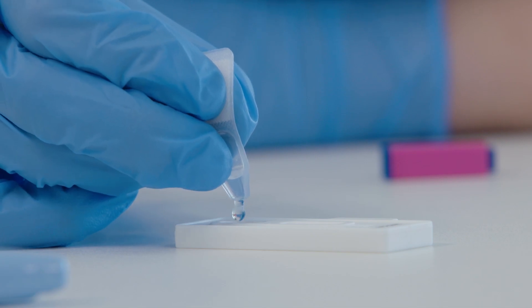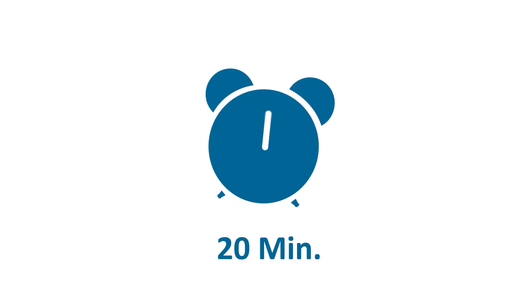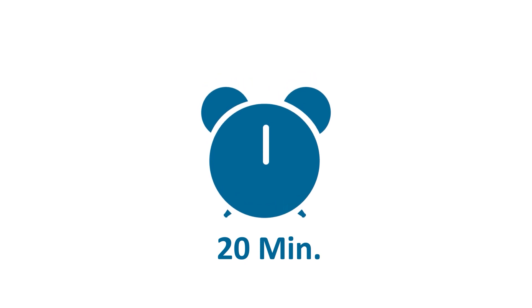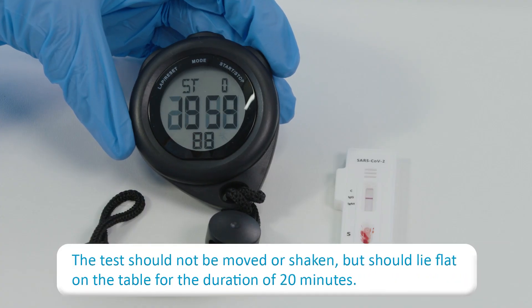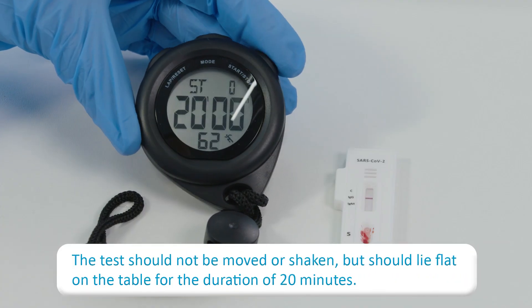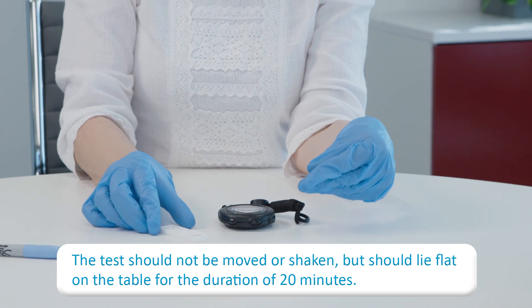After exactly 20 minutes have passed, read the result from the evaluation window. Never read the results later than this, as it will invalidate the test.